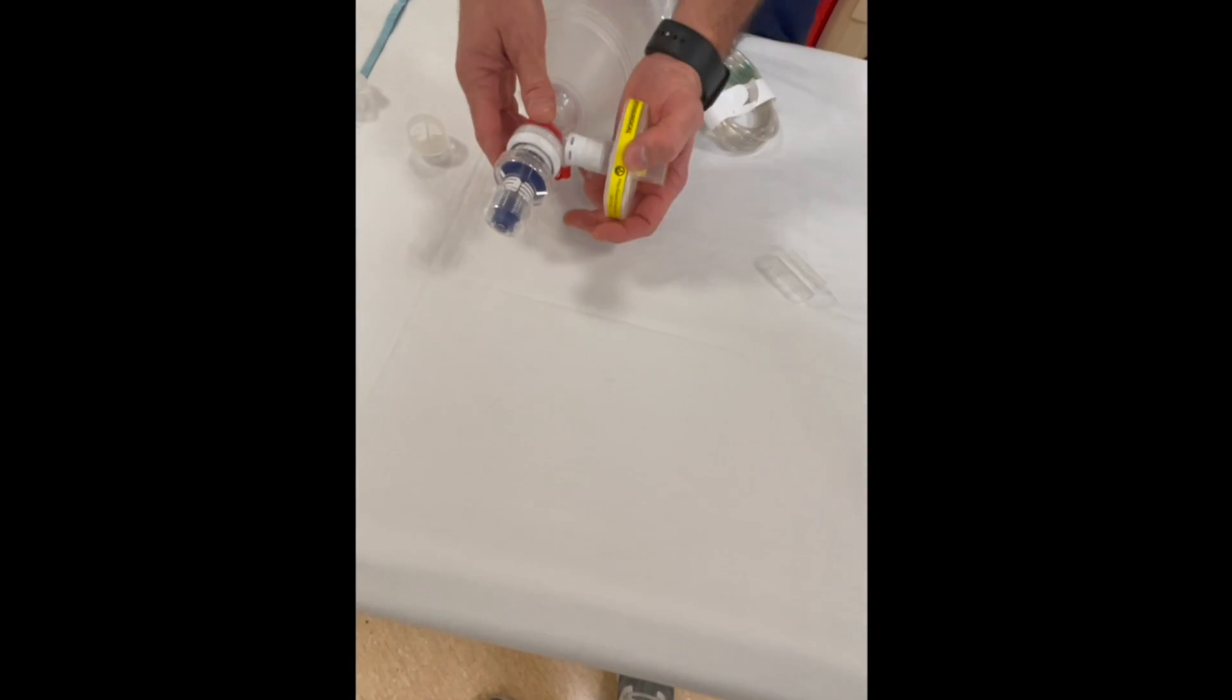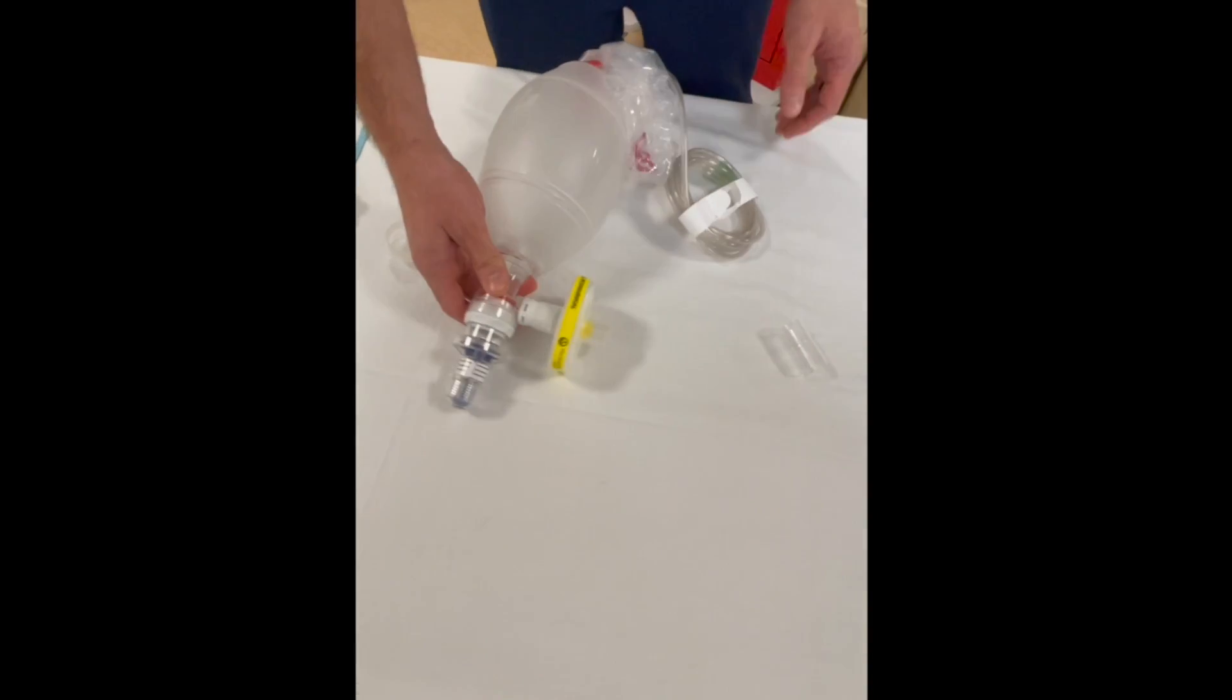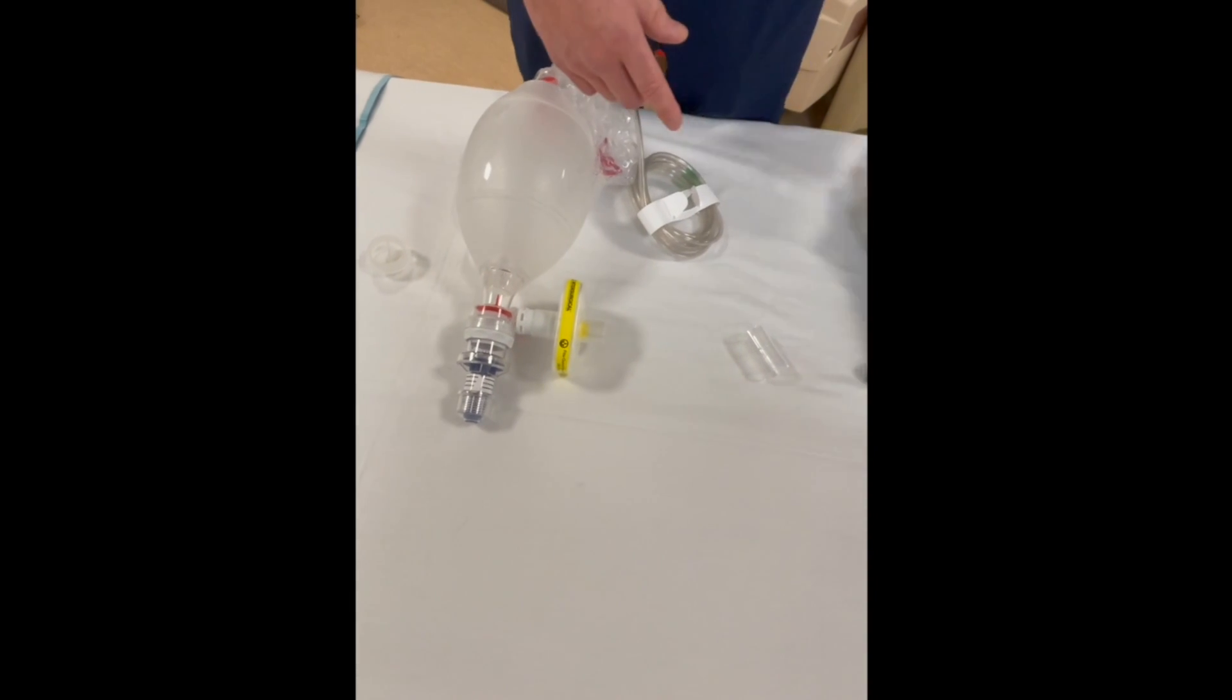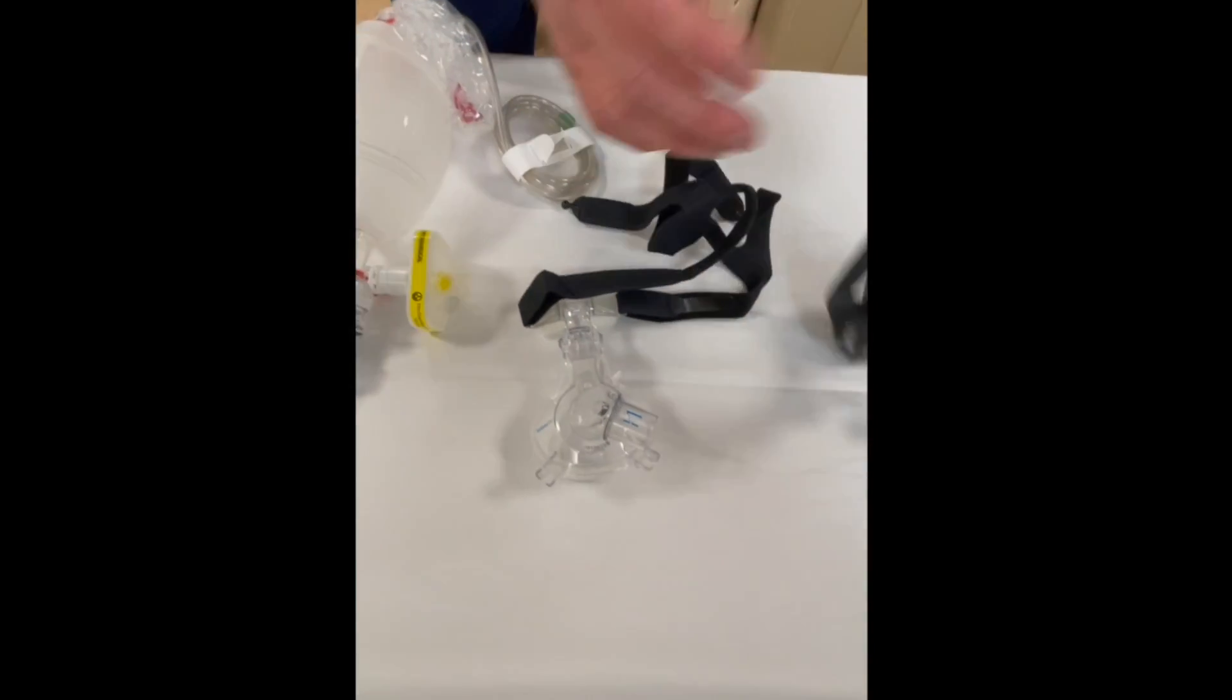What connects directly to the bag valve mask is going to be your viral filter, and then after the viral filter it's going to be our mask.